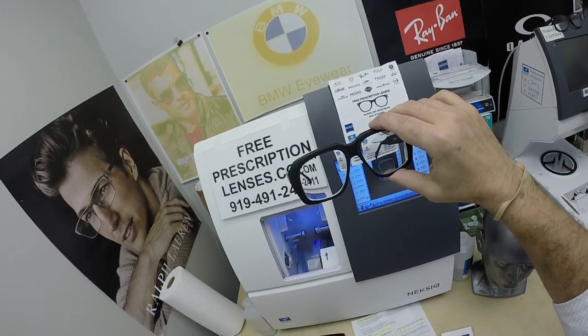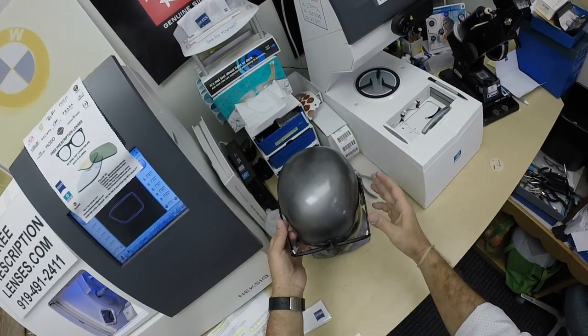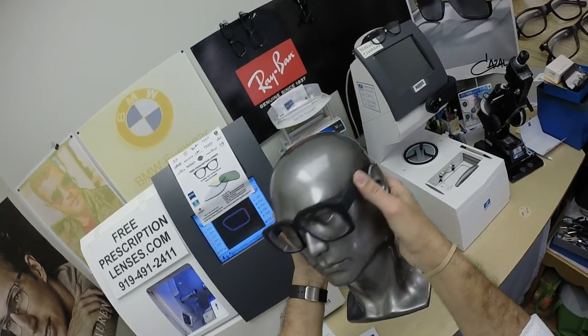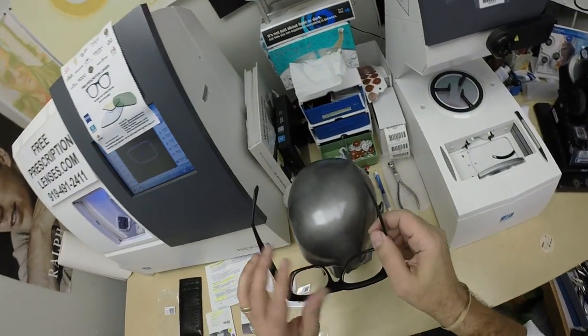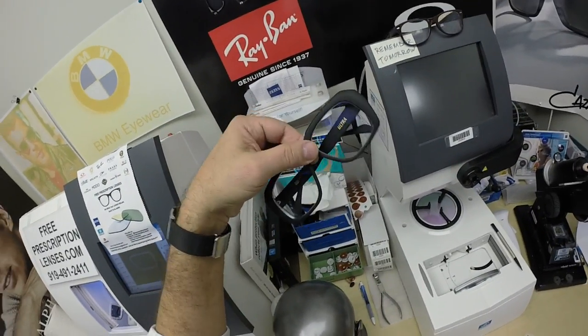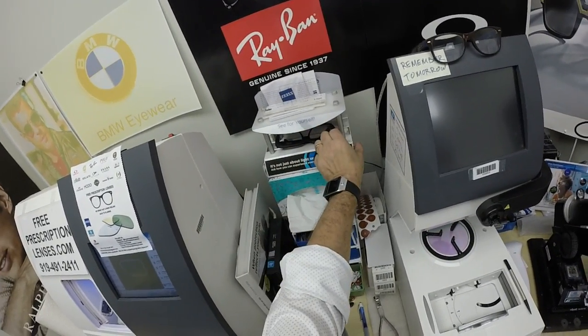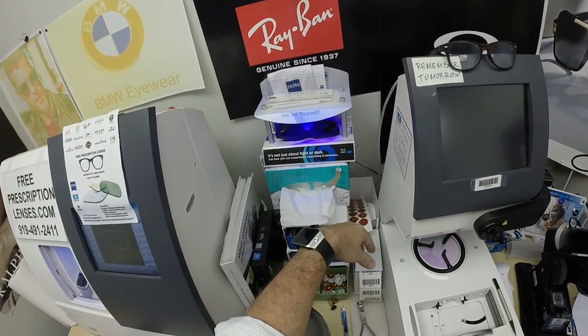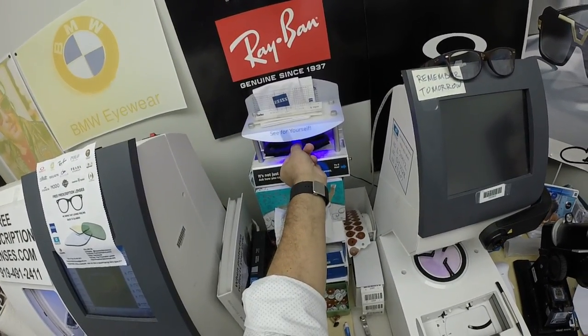Let me show Officer Robin the Goliath. This is what they look like while they are clear, if they even fit on his face. I'm going to go ahead and expose them to a strong burst of UV. Believe it or not, this is the smaller windshield — there's one that's even larger. It takes about 30 to 45 seconds for the lenses to darken, a little bit longer when you come back inside — 45 seconds to a minute, maybe a minute 15.